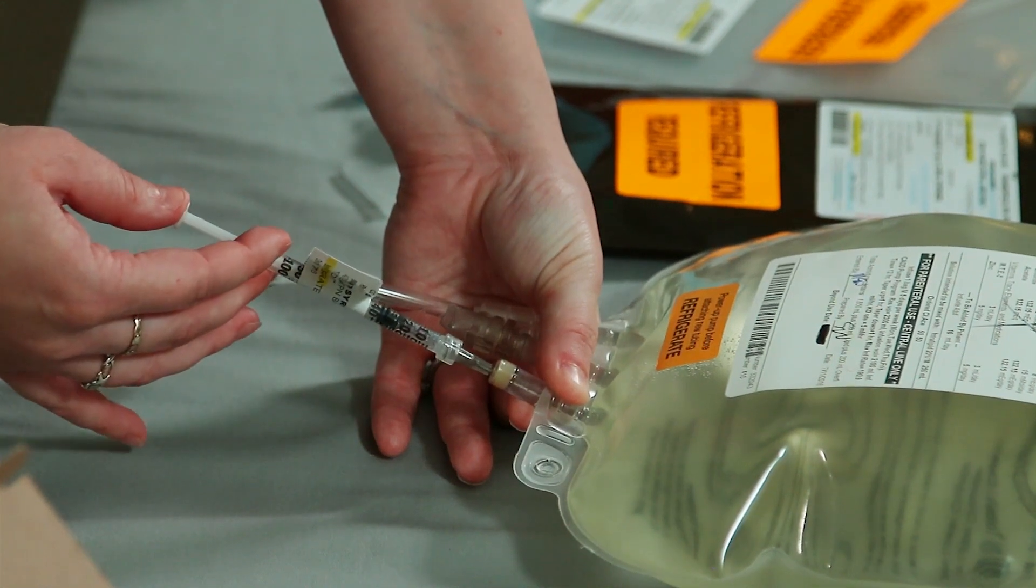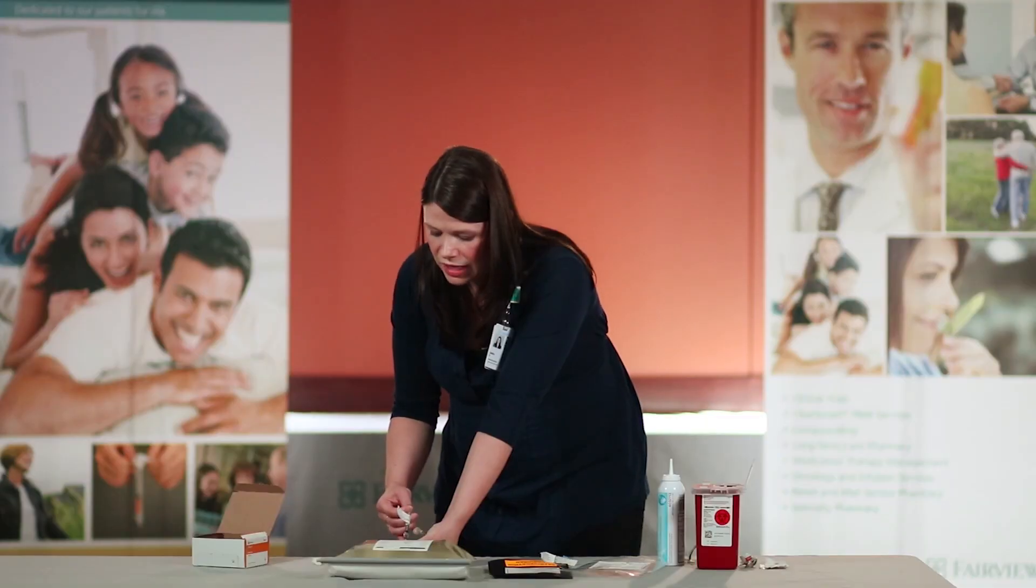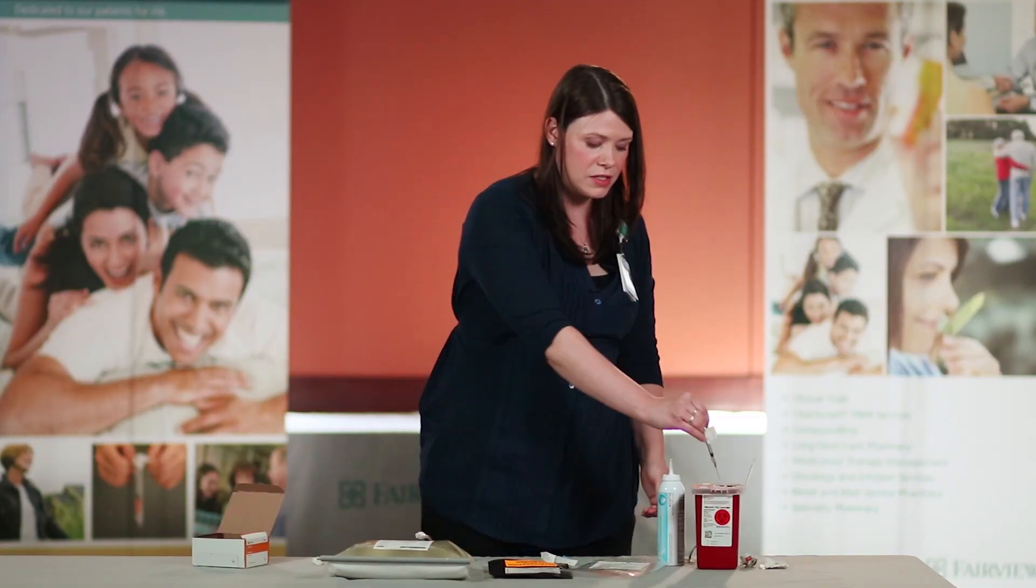Now push in all of the liquid medication. Remove the needle and place in the sharps container.